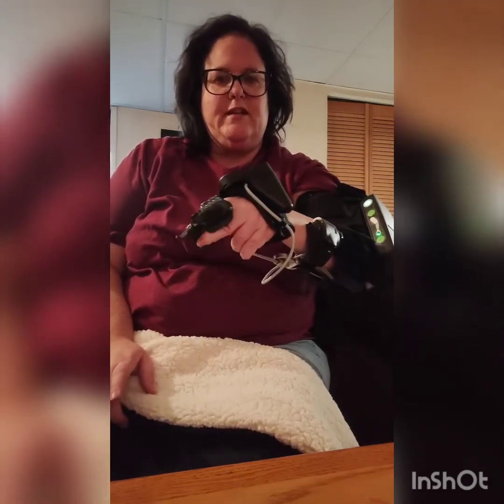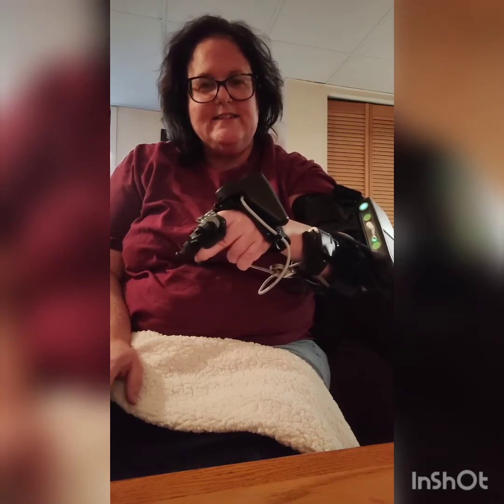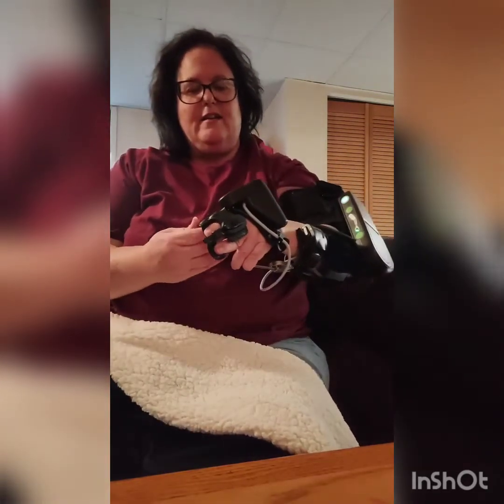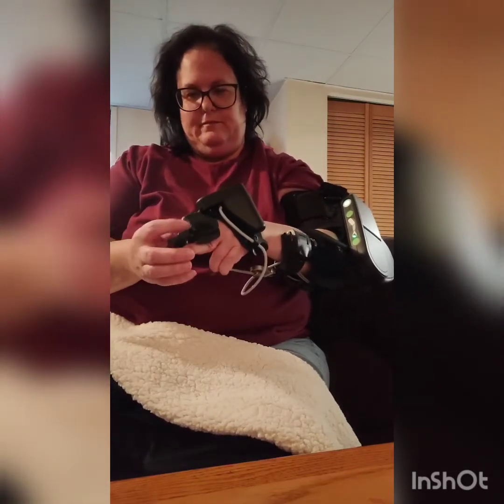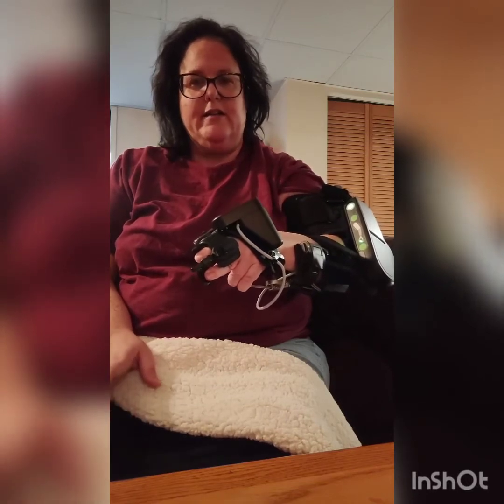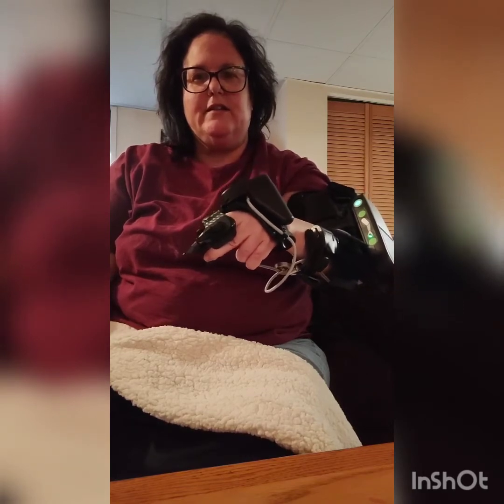So when I did that, and now I relax. I'm going to do it again. And now I'm going to relax. So I'm actually opening my hand. My thumb sticks in that little thing. It does hurt a little bit. But I think every time I'm not thinking about it, it does send messages randomly, so my hand will randomly open and close. So I want to close it and hold it as long as I can. Then relax and it opens.